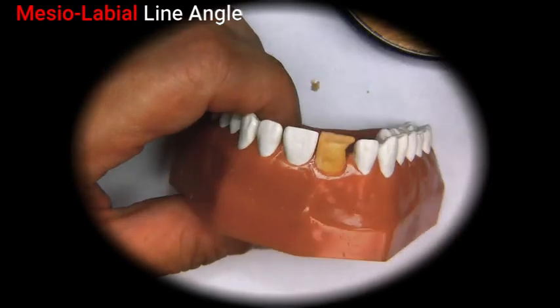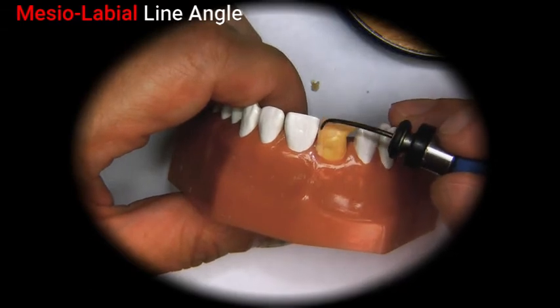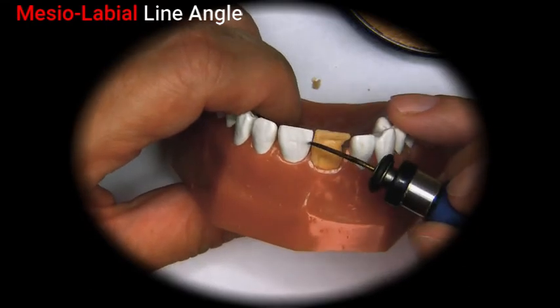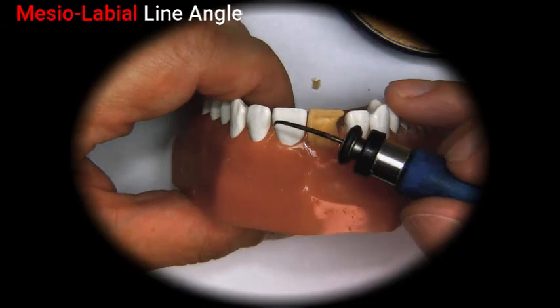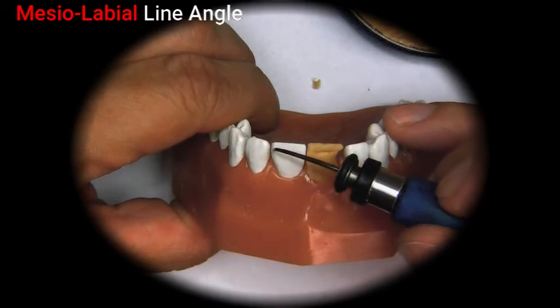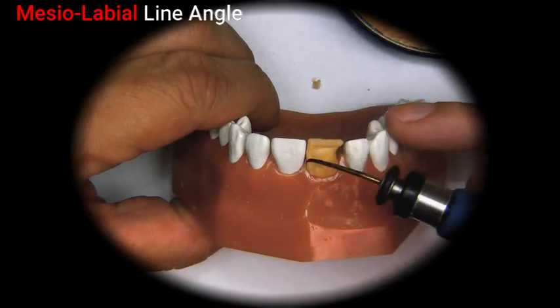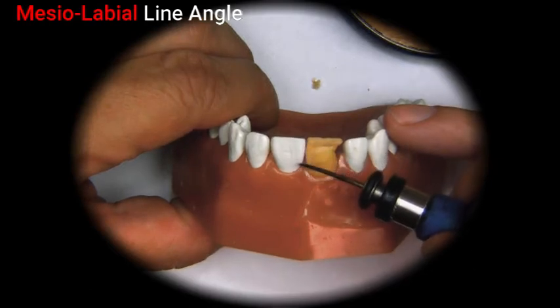So as we're waxing up the mesial line angle, you have to kind of look at the shape of this tooth. On the distal, we notice that it has a bulbous shape, and it comes down to a narrower neck. On the mesial, it has more of a slight curvature.